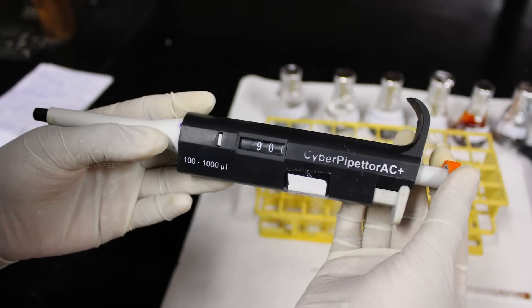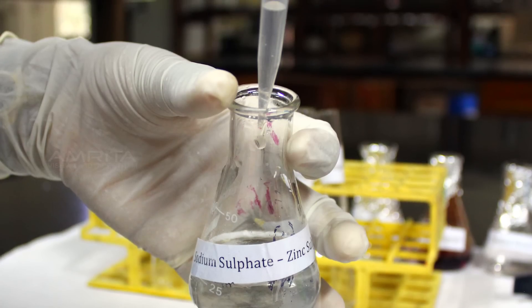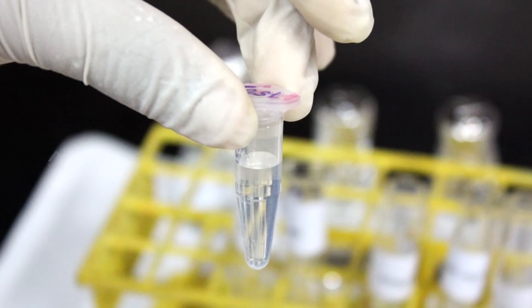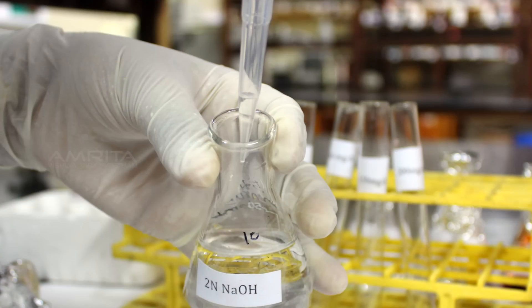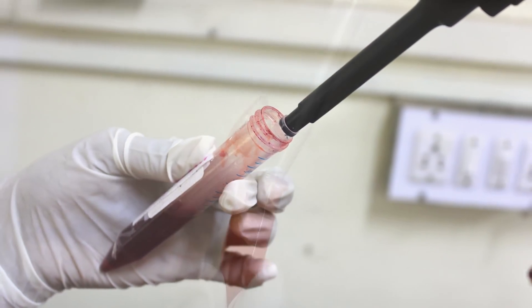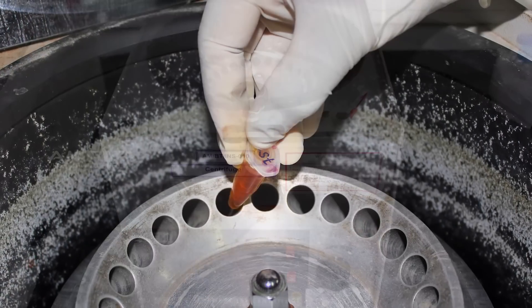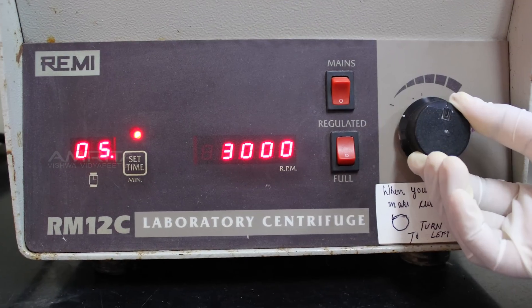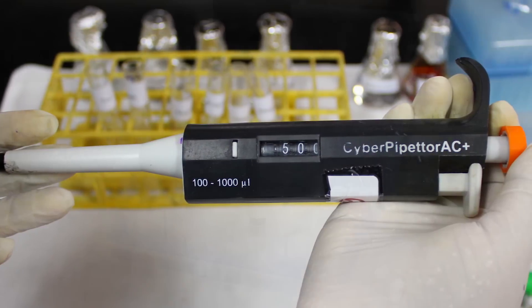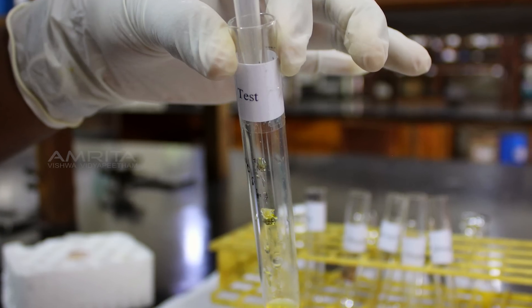Procedure: First, transfer 900 microliters of sodium sulphate zinc sulphate solution to a 1.5 ml microfuge tube labelled as test. Likewise, transfer 50 microliters of 2 normal sodium hydroxide and 50 microliters of blood sample into the same microfuge tube. Now centrifuge the sample at 3000 rpm for 5 minutes. After 5 minutes, take out the centrifuge tube and carefully transfer 500 microliters of supernatant to a test tube labelled as test.